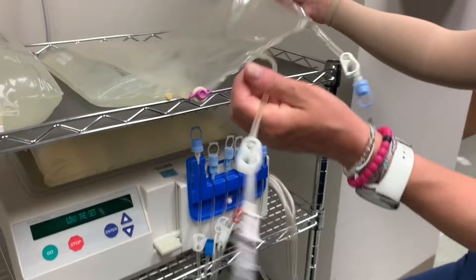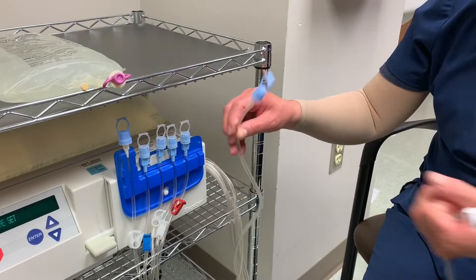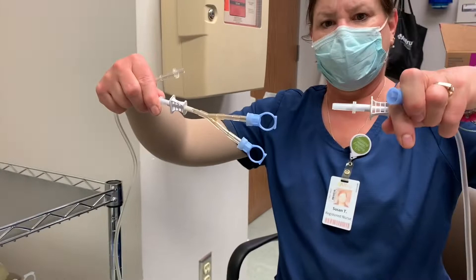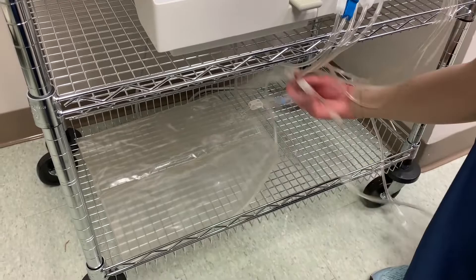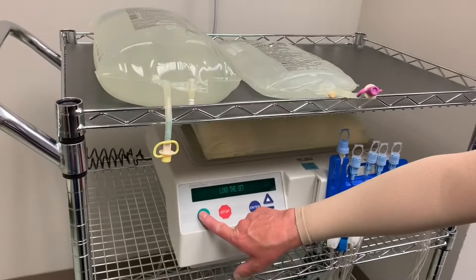Connect your drain bag, and make sure you close the large sample port or you will have a mess. Take the drain line, start from the right, remove the cap — this is where you would use the drain manifold if you had two drain bags. Screw it on and place it shiny side up. If there's any doubt that you can't see through that bag in the morning when the patient is done, they probably have an infection — save that bag and call the doctor right away.